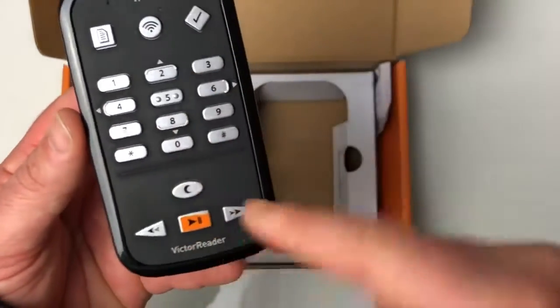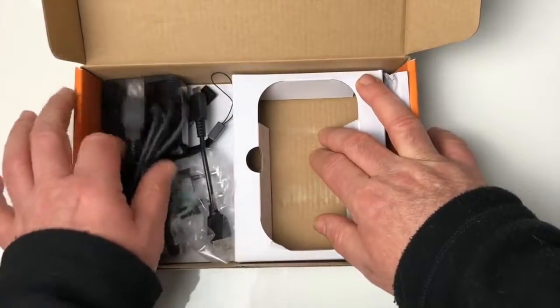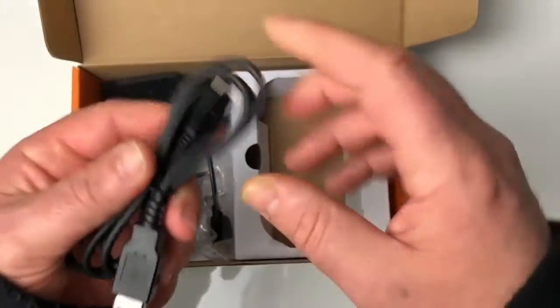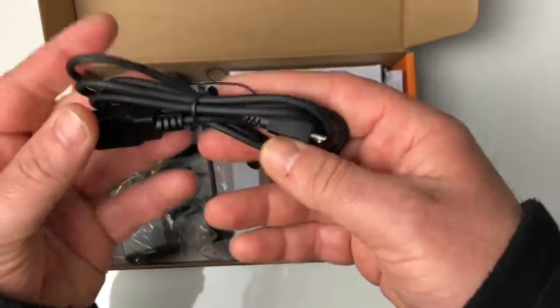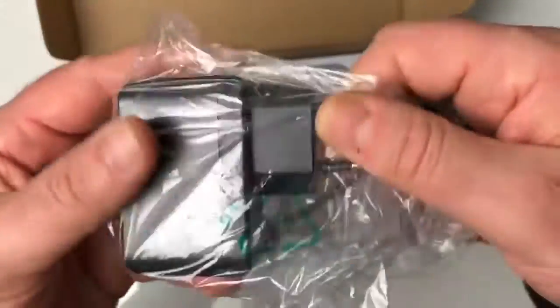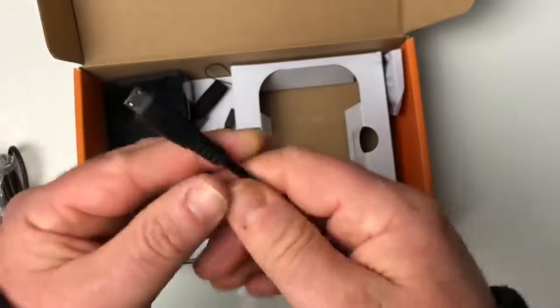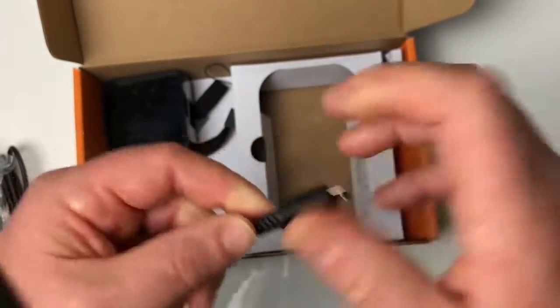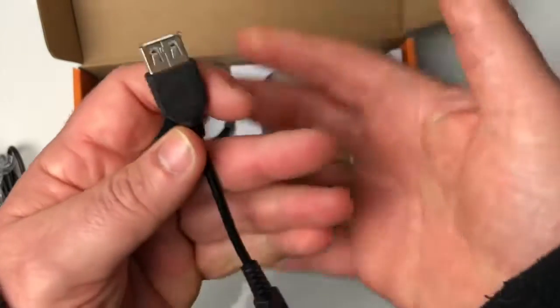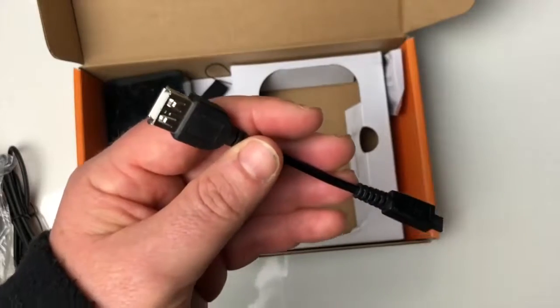Voilà le côté hardware de l'appareil — un joli petit appareil. Comme d'habitude, Humanware a l'habitude de nous faire un petit code couleur sur les différents boutons. On continue de regarder ce qu'il y a dans la boîte. Dans le compartiment à gauche de l'appareil, on a le câble micro USB livré naturellement, puis la prise murale, et un adaptateur USB avec d'un côté micro USB et de l'autre une rallonge USB où on pourra connecter une clé USB pour partager des données — faire du copier-coller de livres, de musique entre l'appareil et la clé.